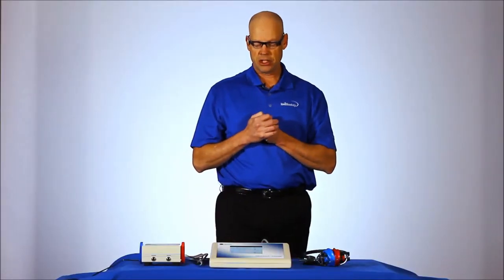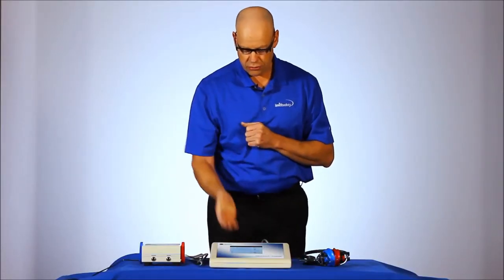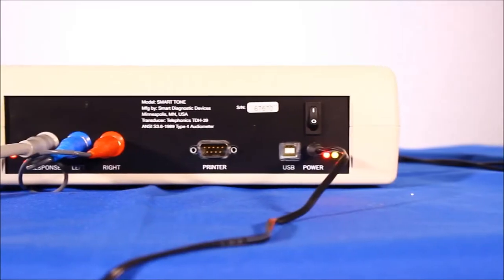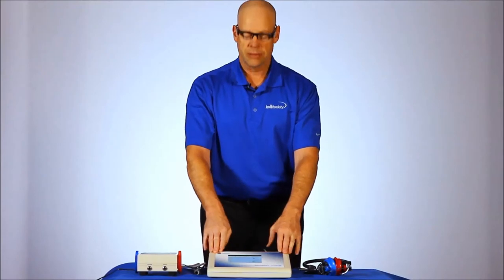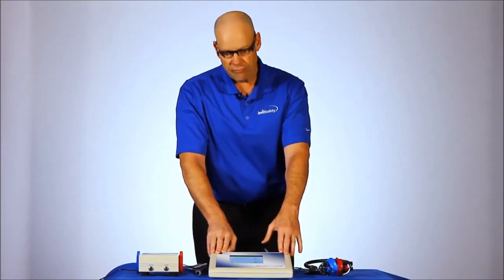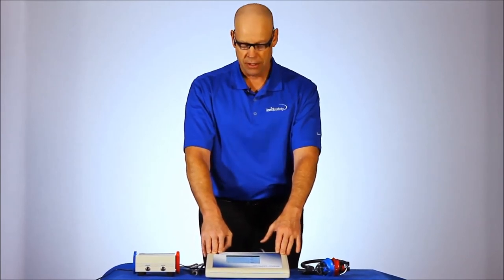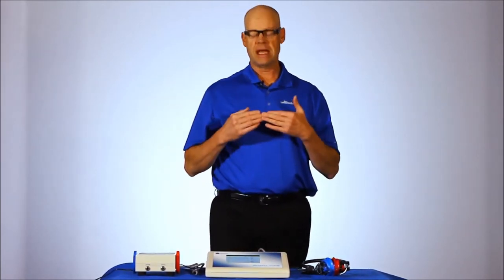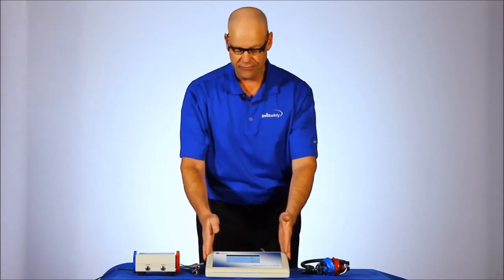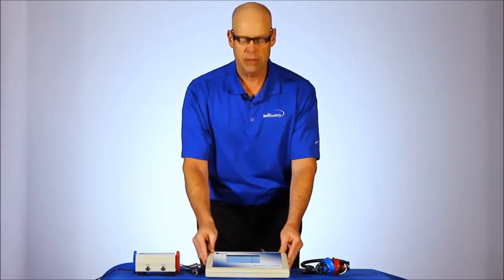A couple of other things I'd like to mention with the device. It also comes standard with a USB output, so it works with a number of major software packages. The HT Pro system from Workplace Integra, HearTrack, the audiometric and hearing conservation program, also interfaces directly to some of the bigger full packages. I'm talking about Medgate and Pure Safety's OHM. So if you're using a software product for maintaining your data, this has full output and interface capabilities for that purpose.